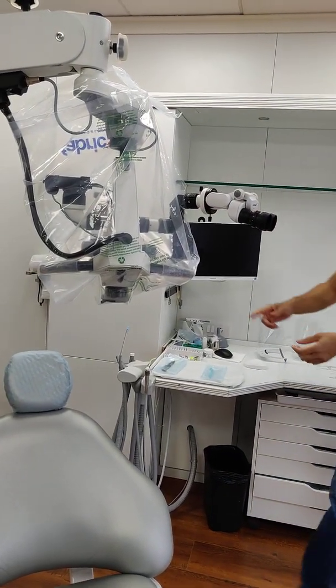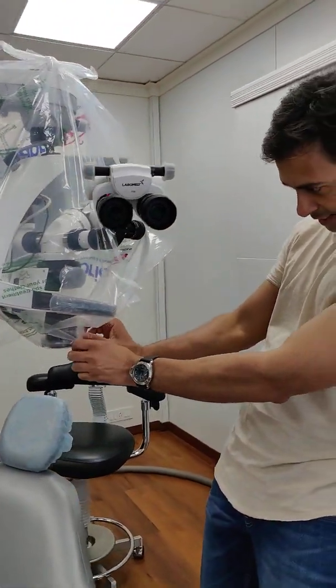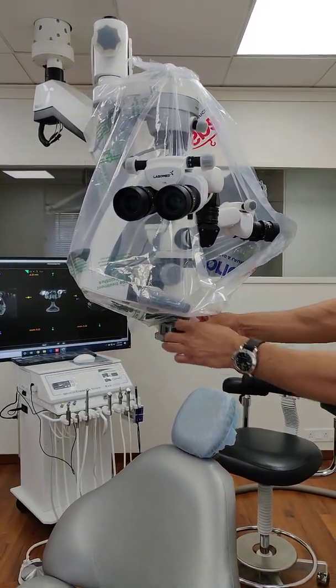Once that's tied there, most of these laundry bags will have an opening at the end. So we use that end itself to give relief for the objective. The objective is released.